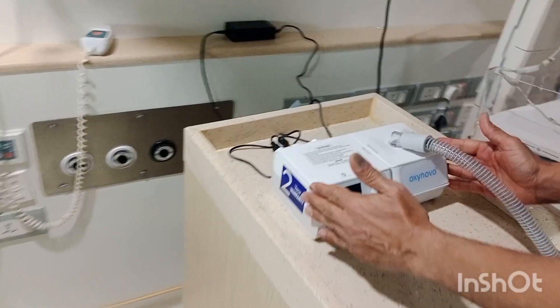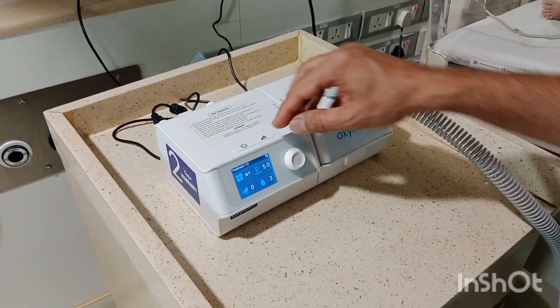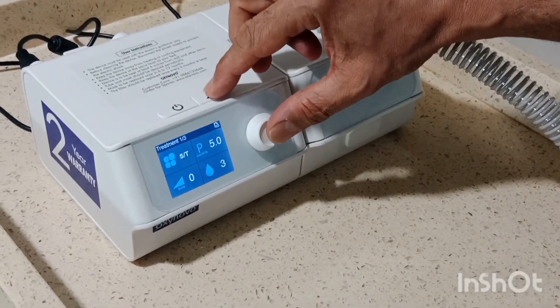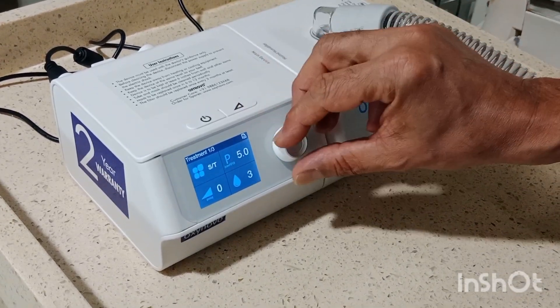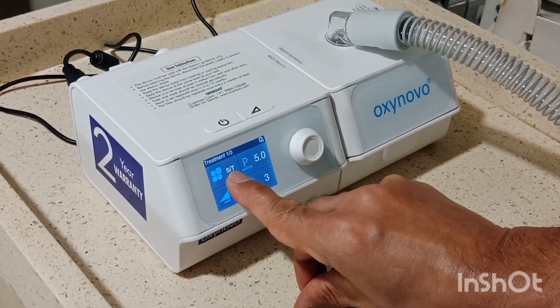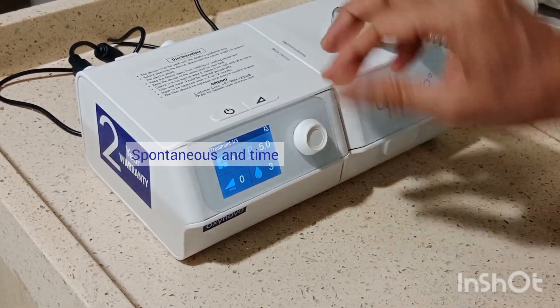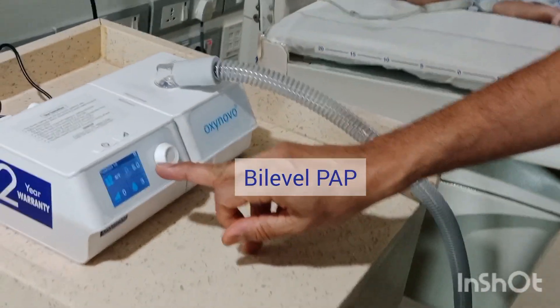Looking at this box, it has a display. These two buttons are the on and off buttons. When you press on, the machine starts and you can see S/T mode — S means spontaneous and T means timed. There are two levels of pressure provided.